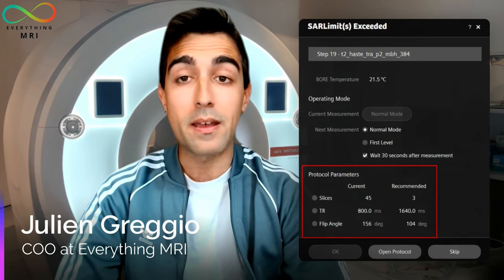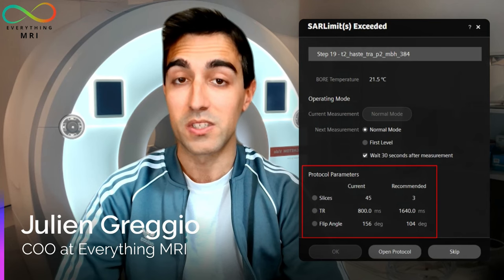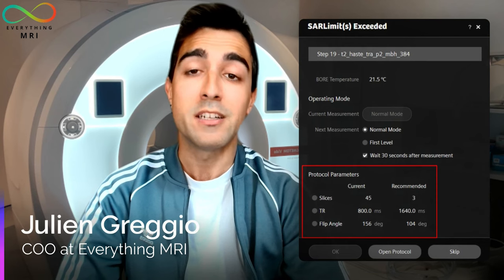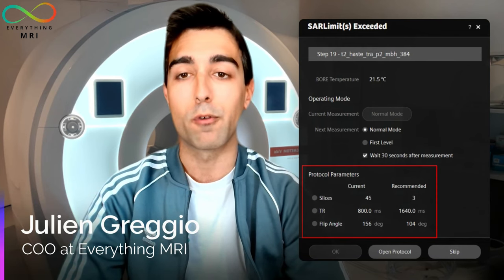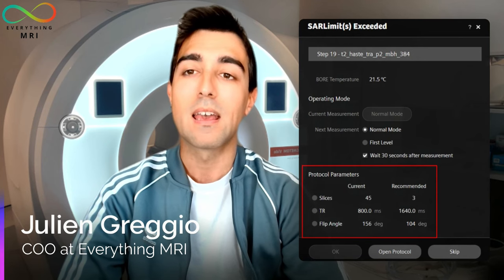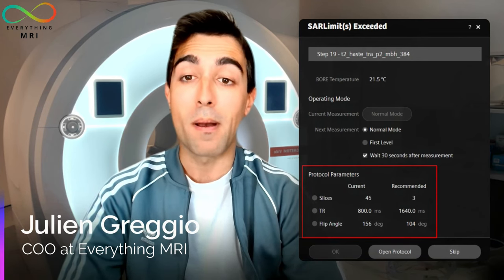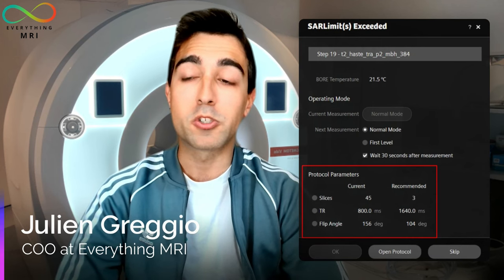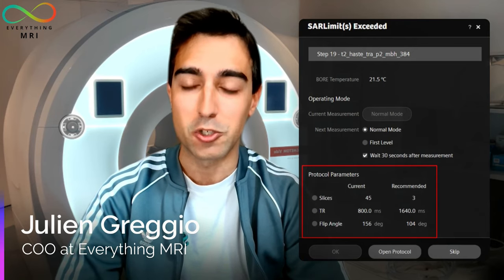This might appear as a message that the scanner can display prior to a sequence starting, like the one we are seeing here at the moment, or this might also consist of an induced break that will prevent the user from proceeding with the scan for a certain period of time. To make sure this will not have a huge impact on our daily workflow, we need to understand what the options are to minimize the SAR from the very beginning of the examination.